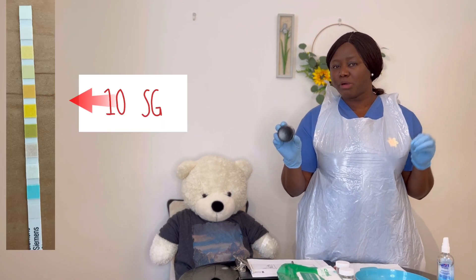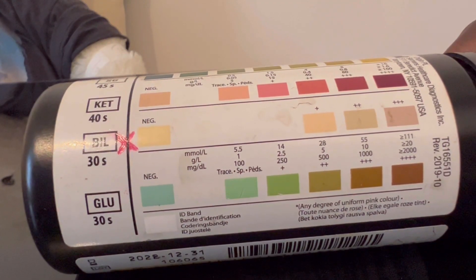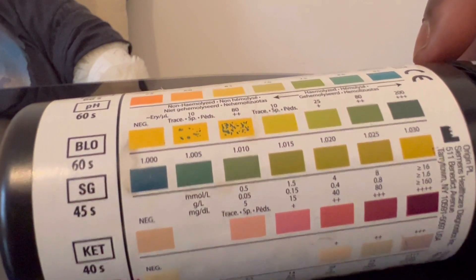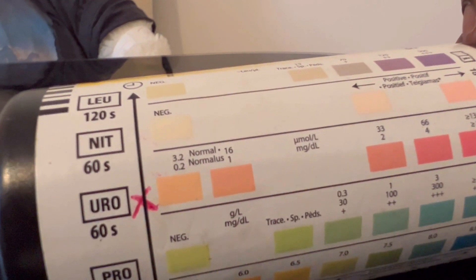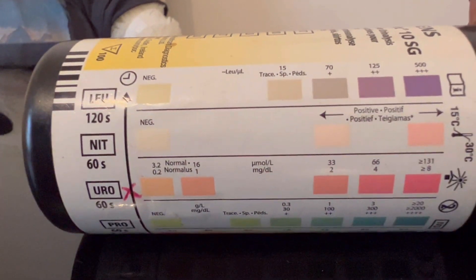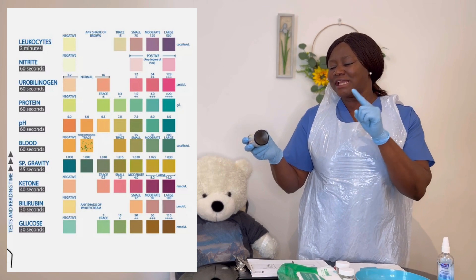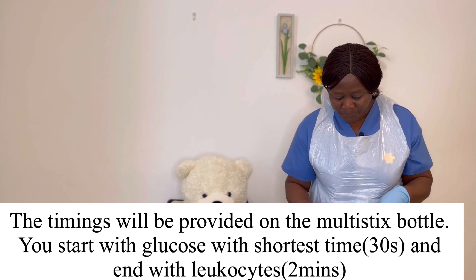Concerning the reagent bottle: we have some multi-stix that are 10 SG and some that are 8 SG. The reagent I'm using is 8 multi-stix SG, but the specimen bottle I have is 10 SG. In this case, I will not be looking out for bilirubin and urobilinogen. So if you have 8 SG on your reagent strip, know that even if you have a 10 SG multi-stix bottle, you won't check for bilirubin and urobilinogen — you'll only have 8 square pads on your reagent stick.